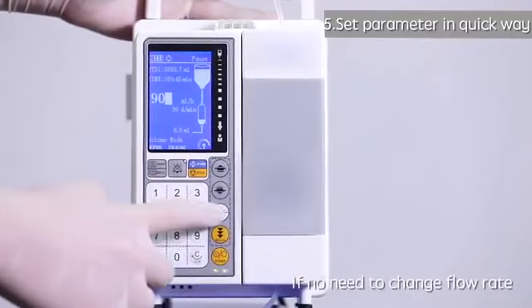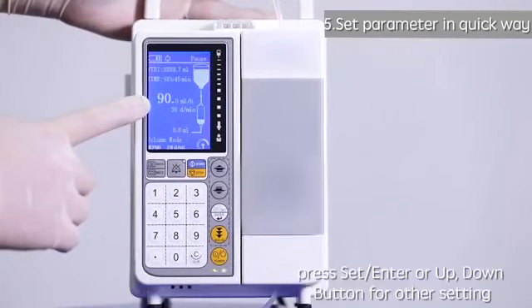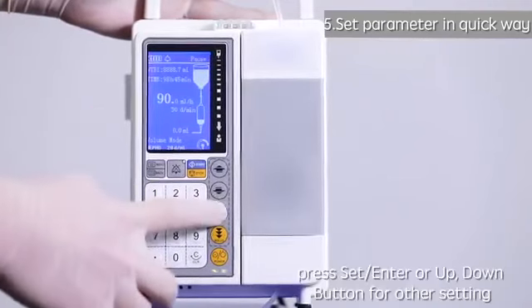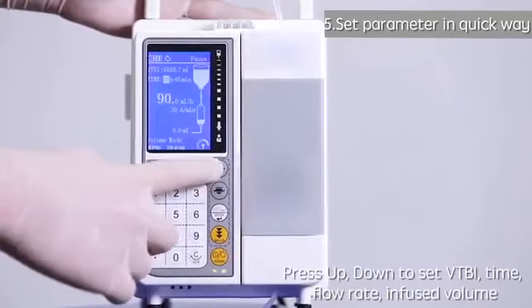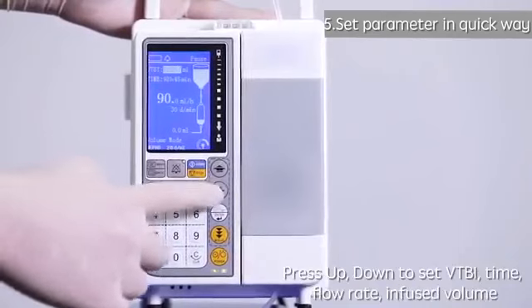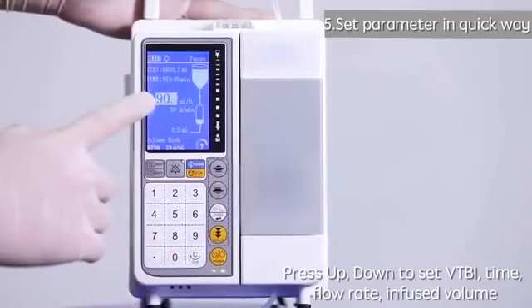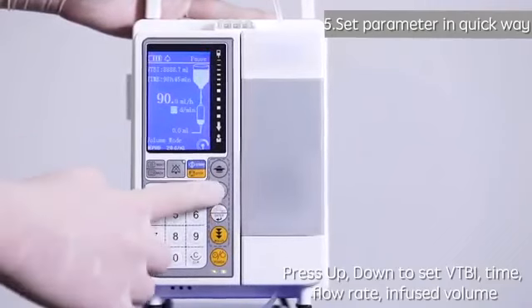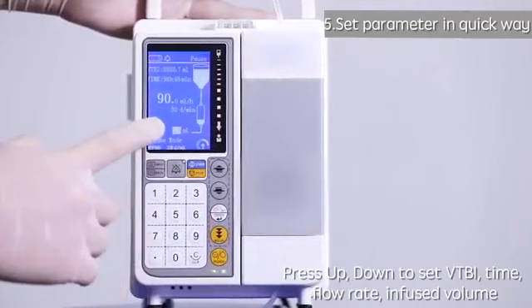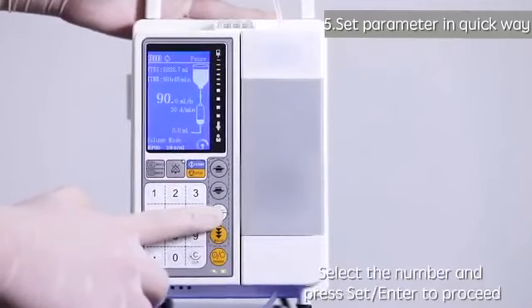If no need to change flow rate, press Set Enter or Up, Down button for other settings. Press Up, Down to set VTBI, time, flow rate, infused volume. Select the number and press Set Enter to proceed.